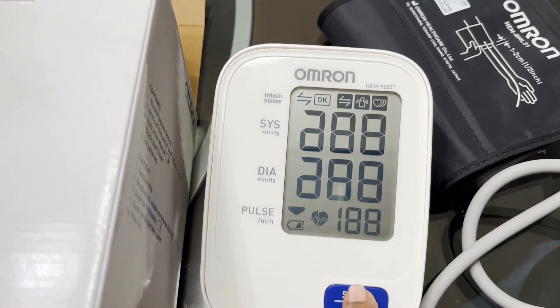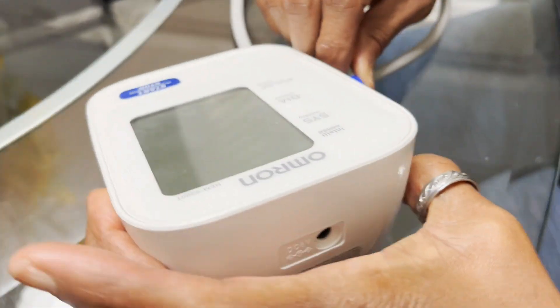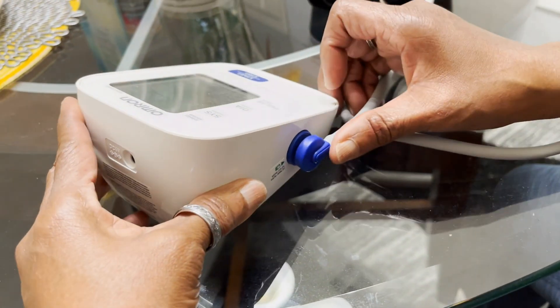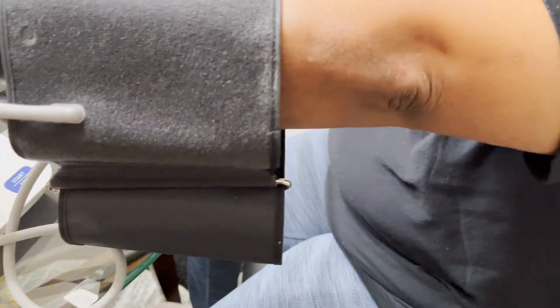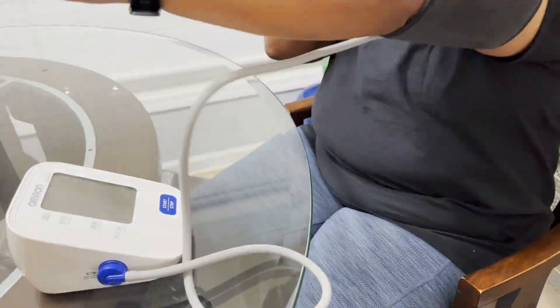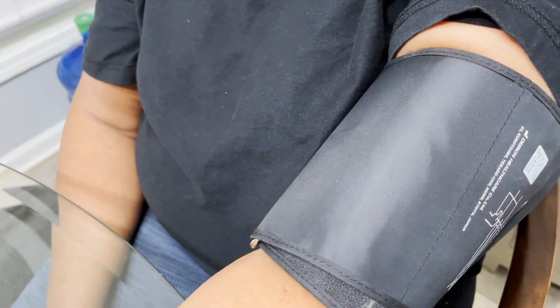Four AA batteries are required. It's one button to start and stop the monitor. You simply plug it in and slide the cuff on your arm — preferably your left arm — so that you can get an accurate reading. It's all very simple, and this was recommended to me by my doctor.